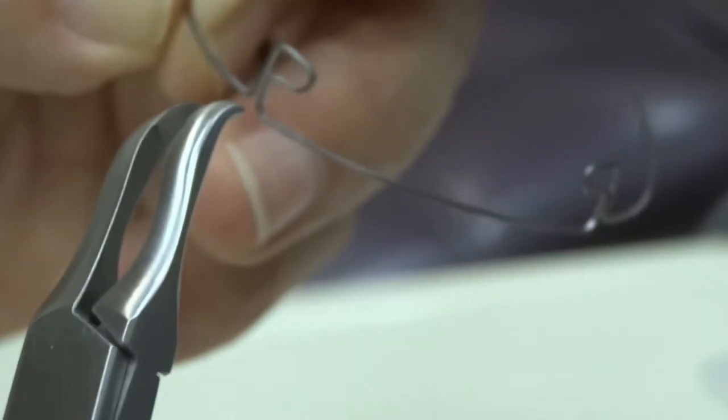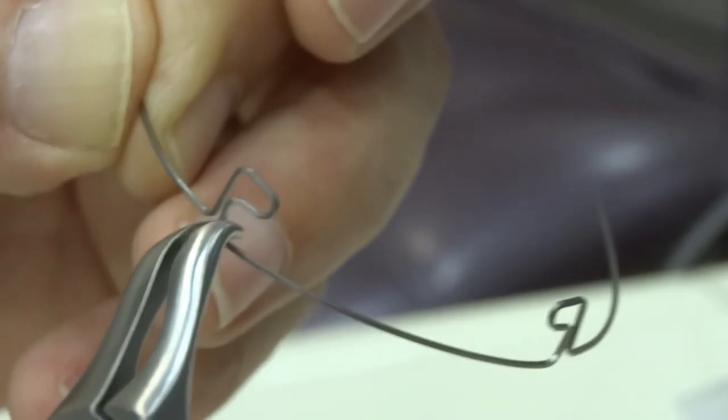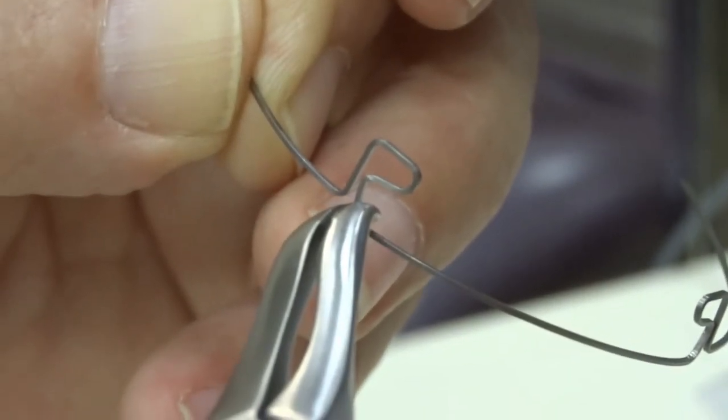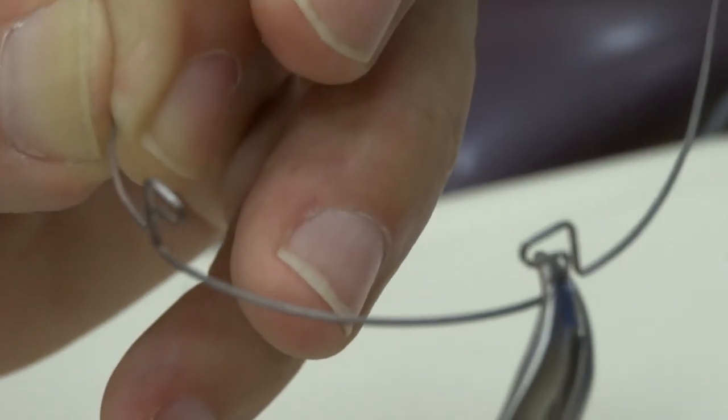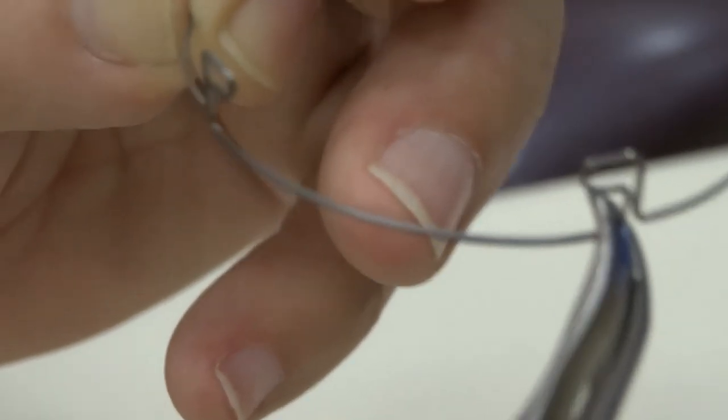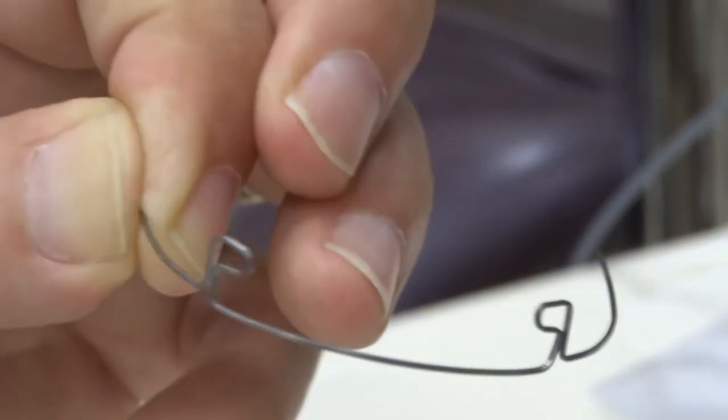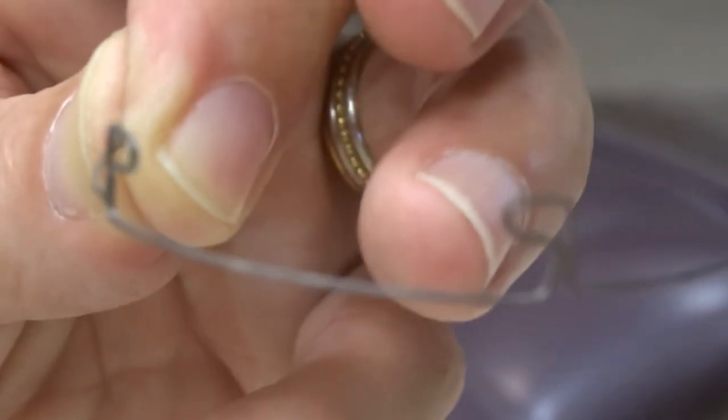All I need to do is to come to this corner and squeeze, and it will remove the torque. And I also obviously have to go to the opposite corner, squeeze, and there is a step-down, but there is no more torque. It's an incredibly versatile wire.